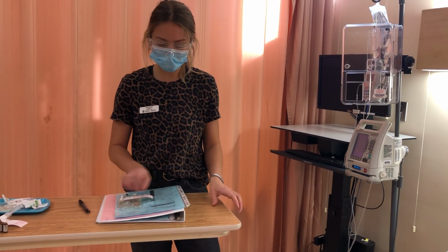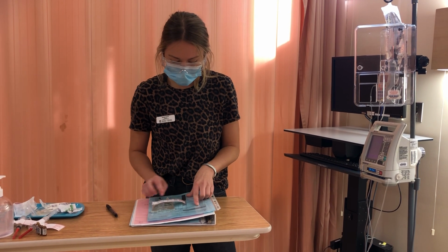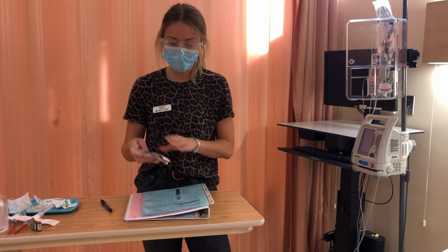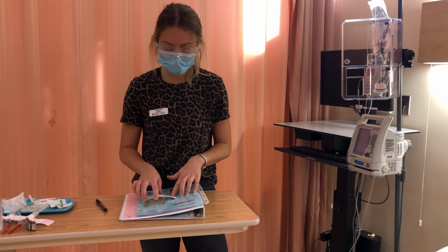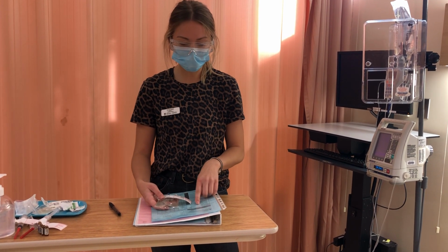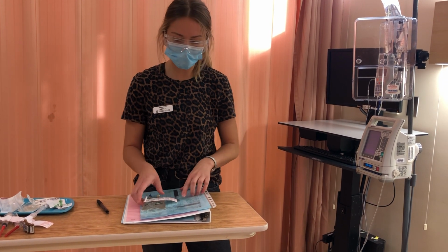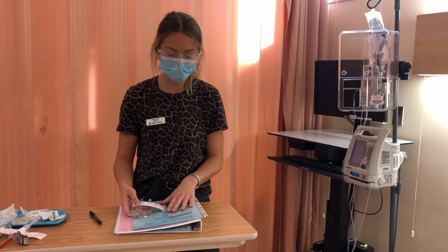The medication that's ordered is morphine 1 milligram per ml. I have morphine in my bag. The PCA dose is 1 milligram. I have 50 milligrams in my bag, but because it's diluted, I have a final concentration of 1 milligram per ml, which is what the doctor ordered. The right route is PCA IV, and I have an IV medication, and I verify that I can give it PCA.